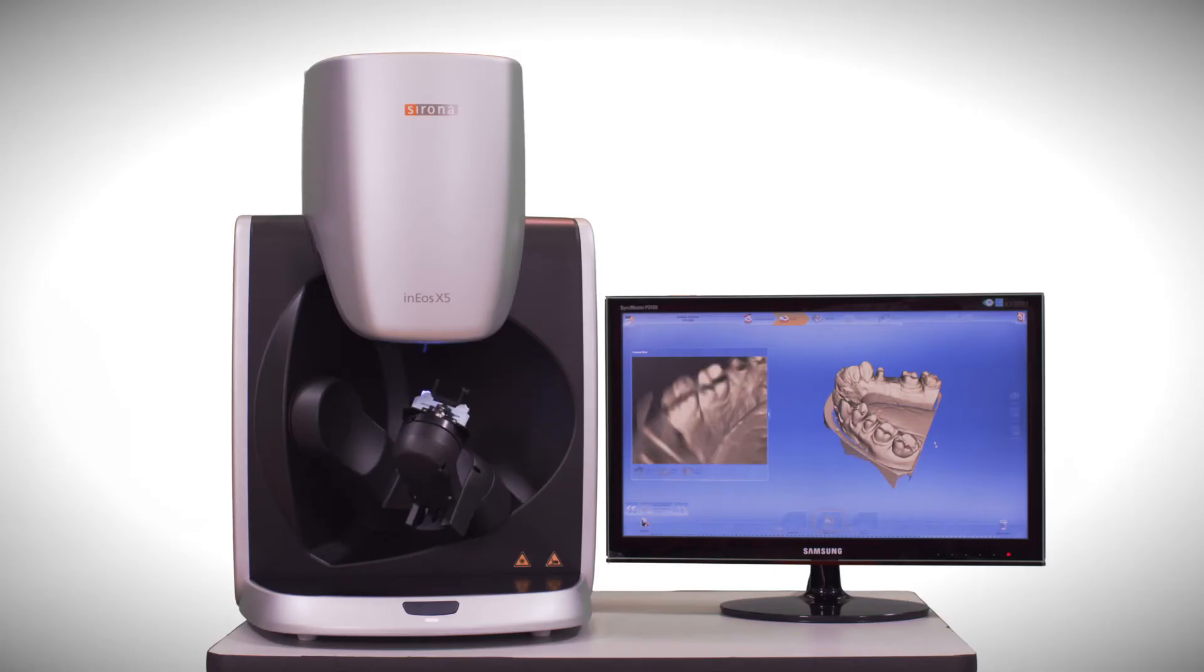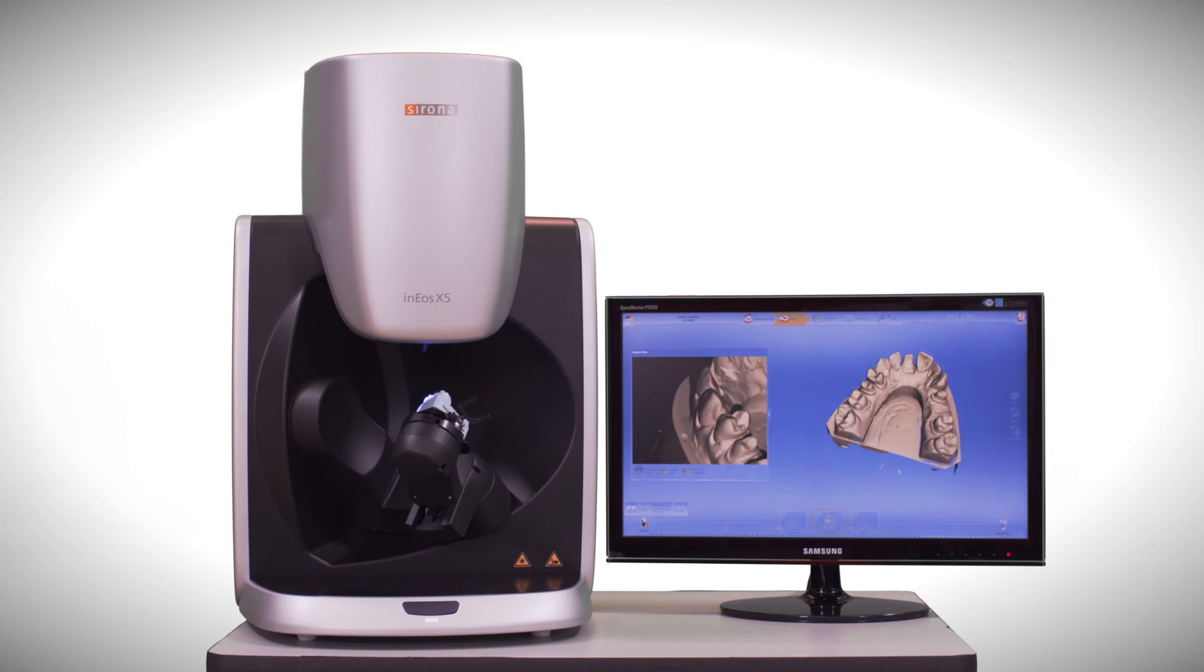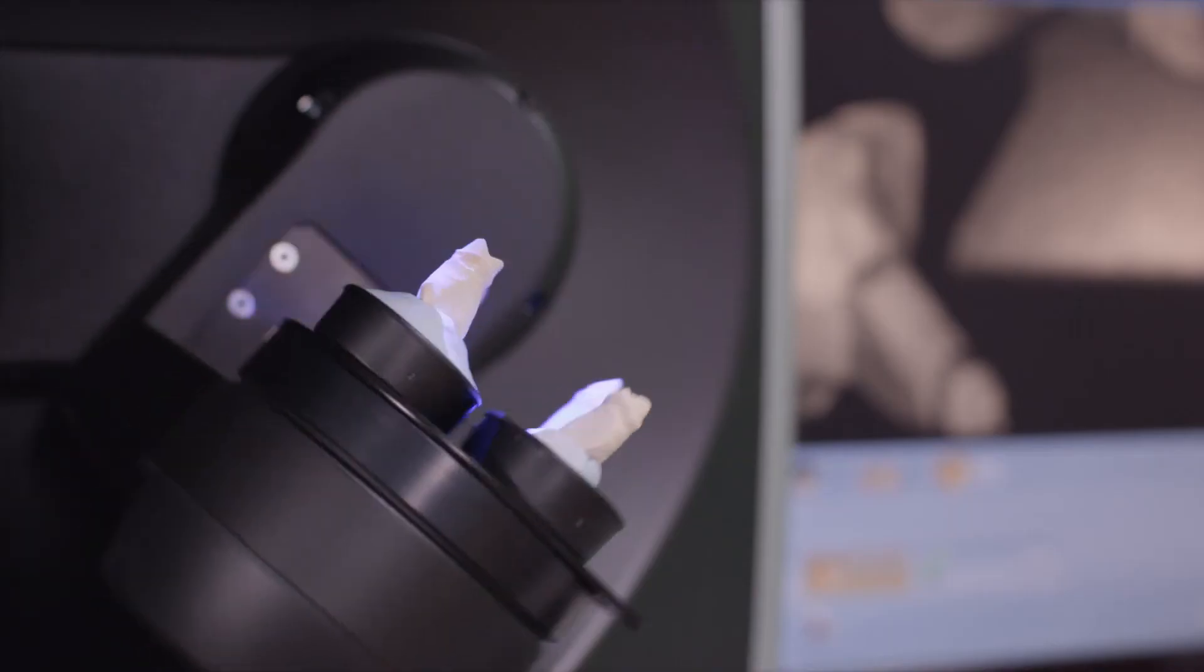INEOS X5 is the most revolutionary, innovative scanner for all of your scanning needs. Experience INEOS X5 today!